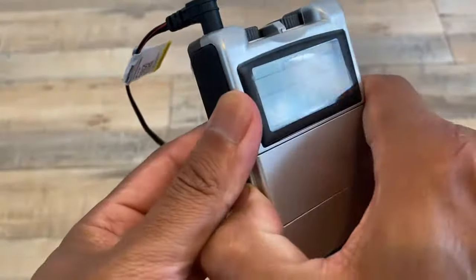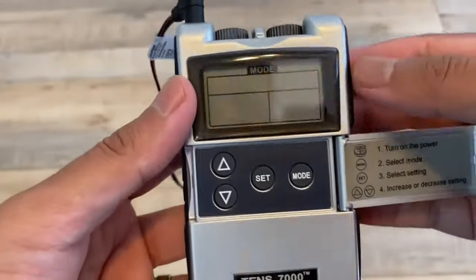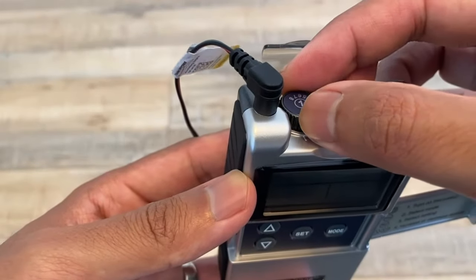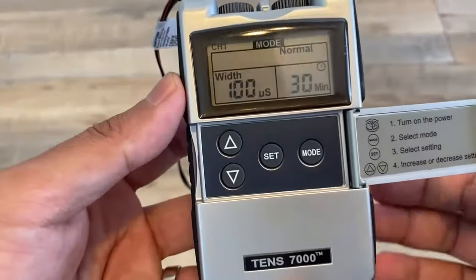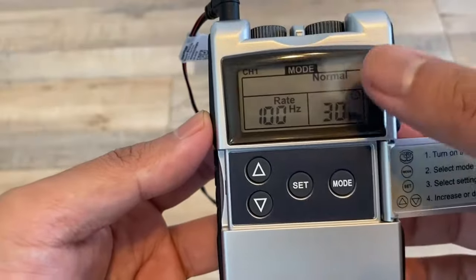If you open this up, you'll see the display. In order to turn it on, take this dial and turn it clockwise just until you hear a beep. When you turn it on, you'll see that it's on 'normal' right here.